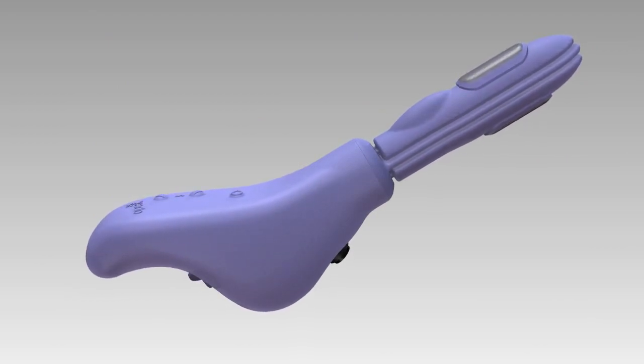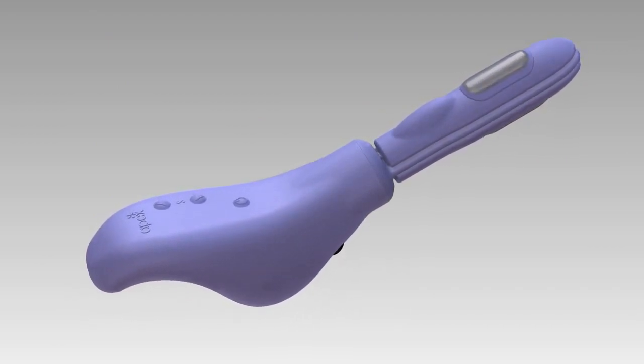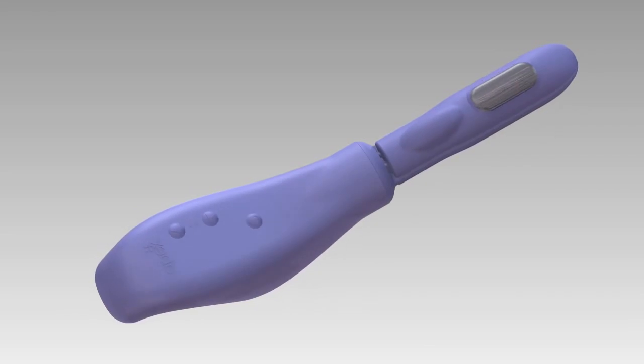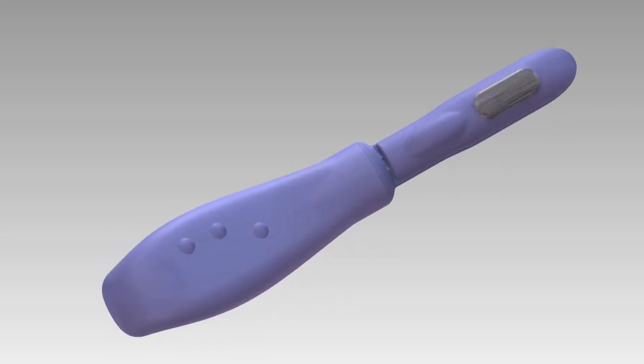Apex eliminates symptoms of stress incontinence by providing a patented muscle stimulation algorithm to strengthen the muscles of the pelvic floor in the privacy of your home.